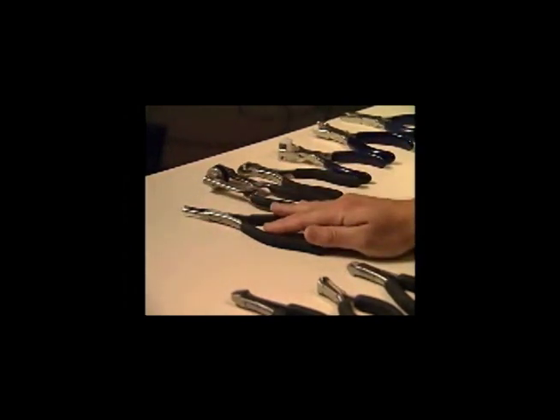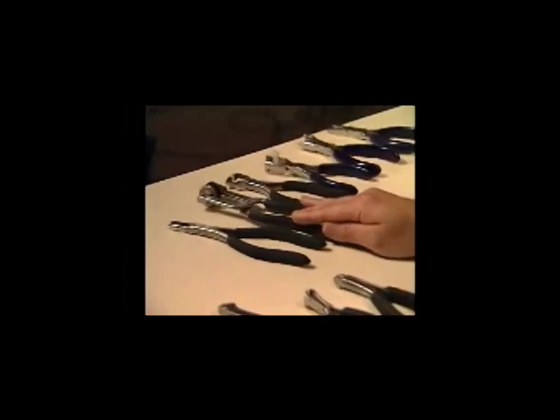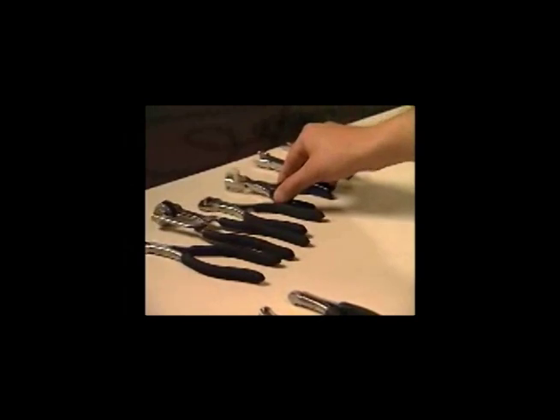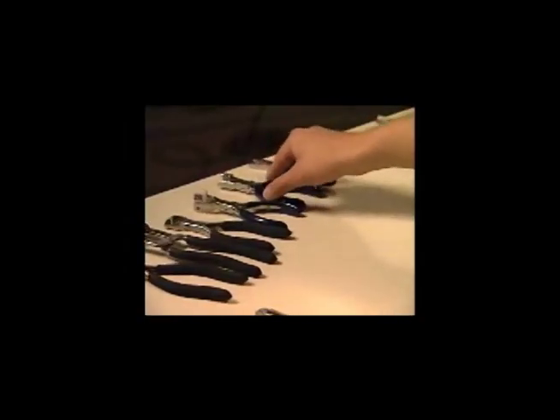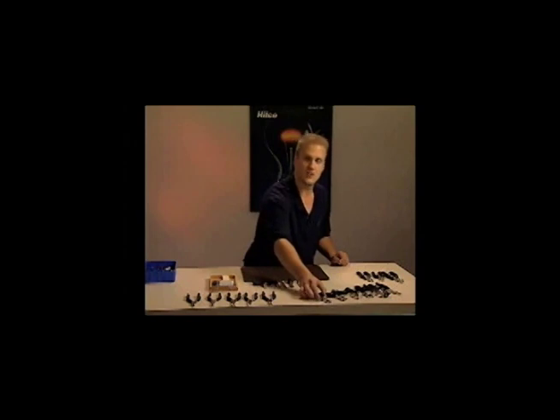Before we get into each specific task of all these hand tools, we'll start with a general overview of pliers — optical pliers designed with a specific task in mind. Such as a plier designed for making adjustments on pad arms, an axis aligning plier used to change the axis of a lens, an angling plier which helps change the pantoscopic angle for the patient, and an eye wire shaper plier designed to shape eye wires if the bevel of the lens is not in the groove of the eye wire. There are also specialty tools such as a shaper plier which can decrease the DBL — the distance between the lenses on particular frames — and screw punching tools.